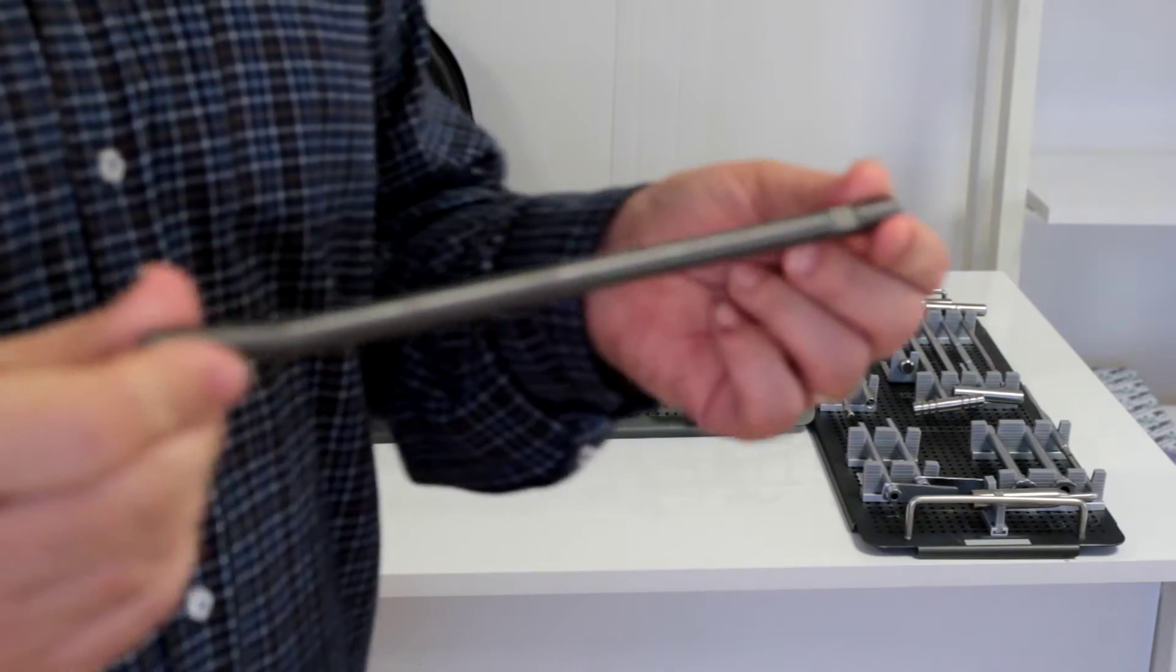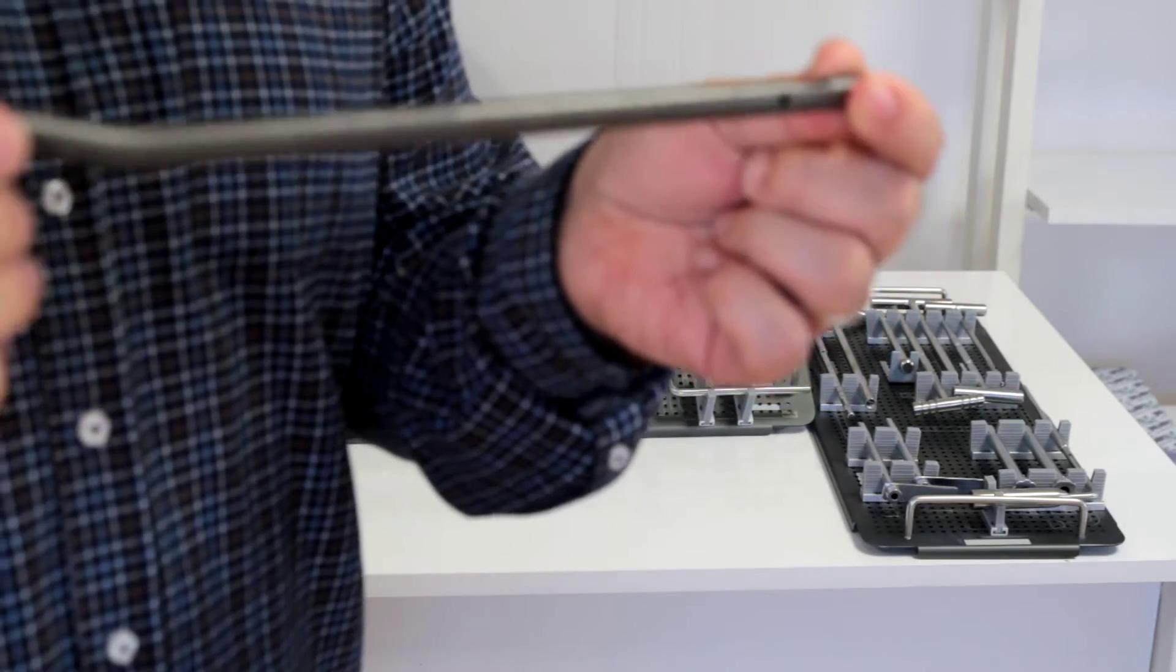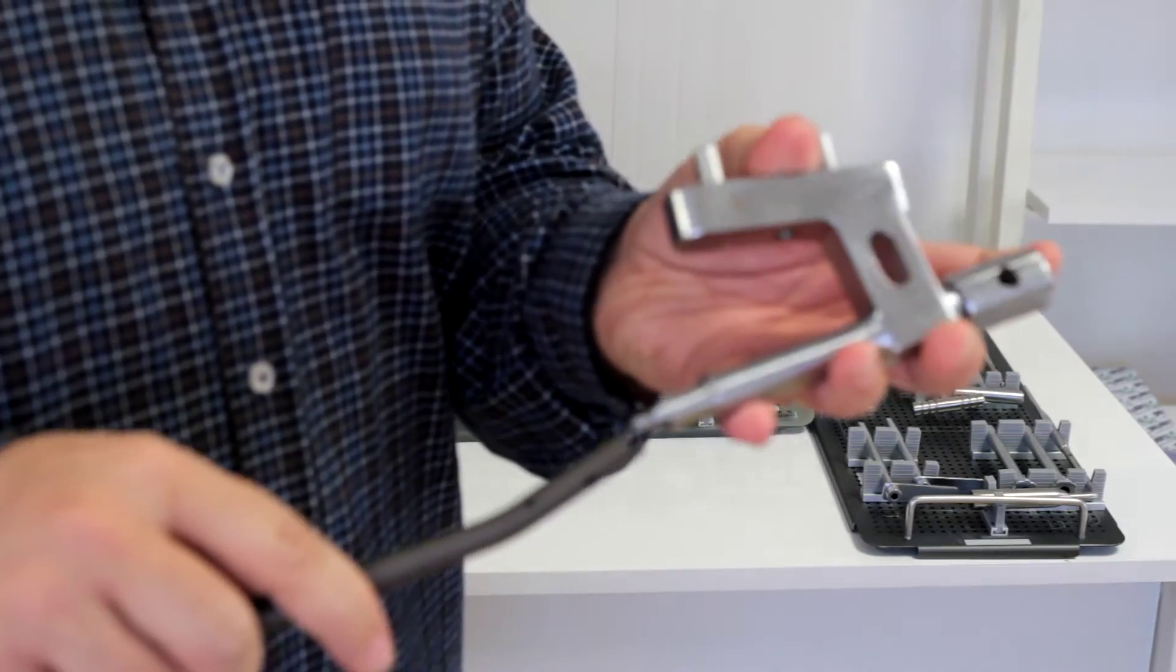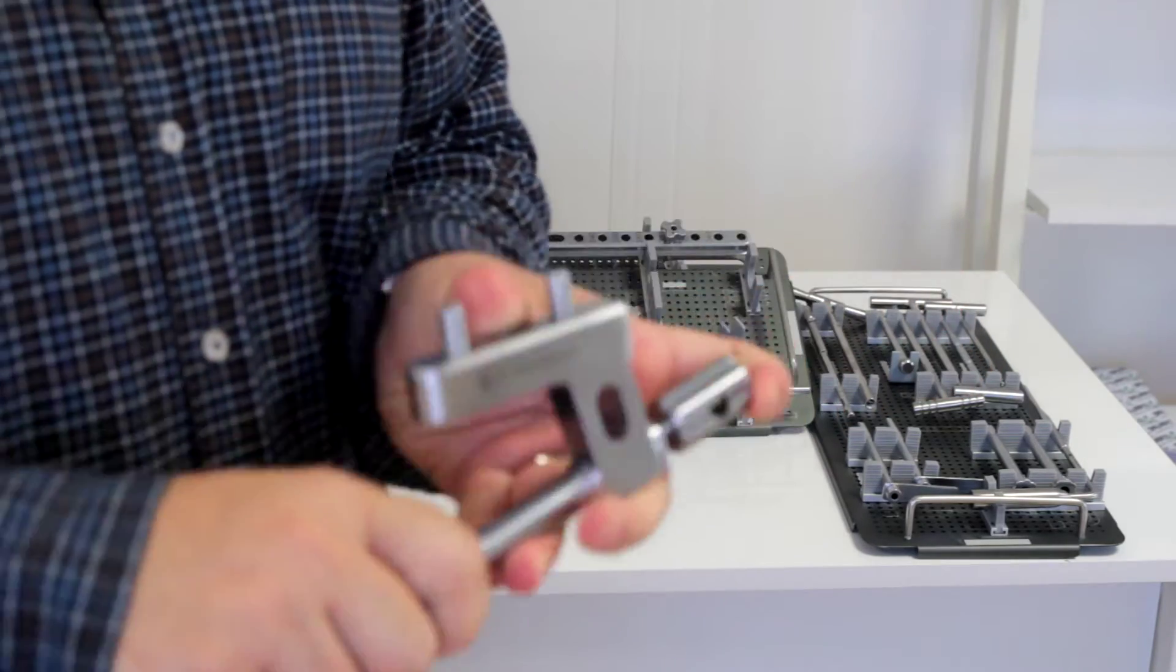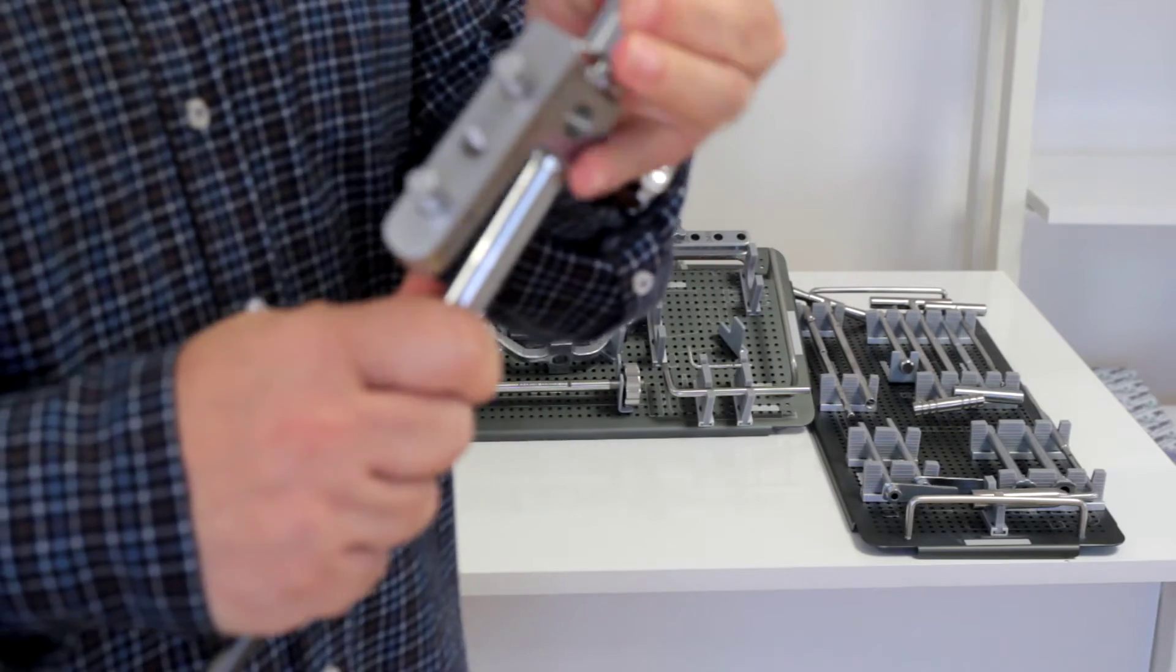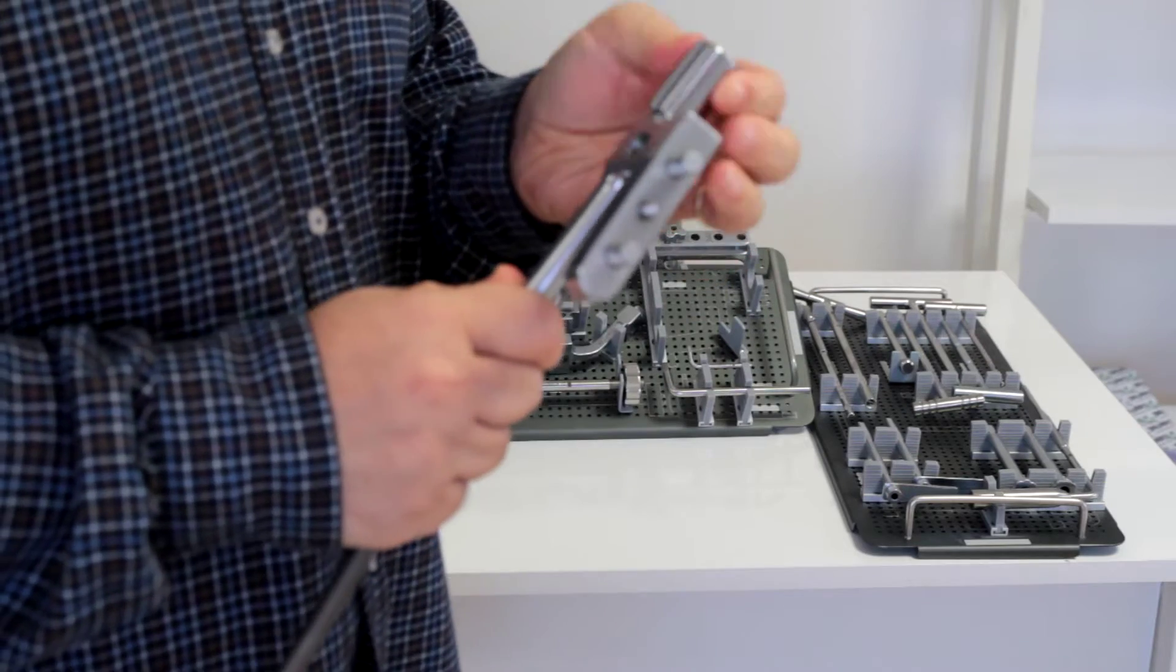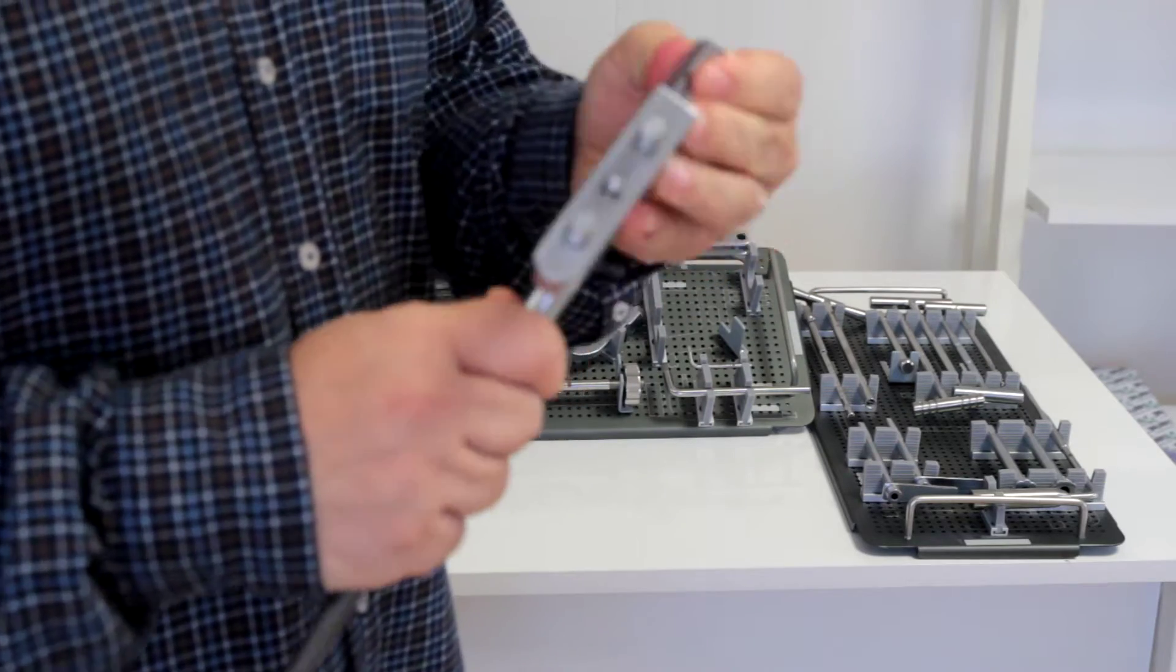Okay, in this video I will instruct how to install a tibial nail. First, you have to take this U-shaped guide and place the nail on it. But the most important thing while doing this, you have to lock everything very strictly.